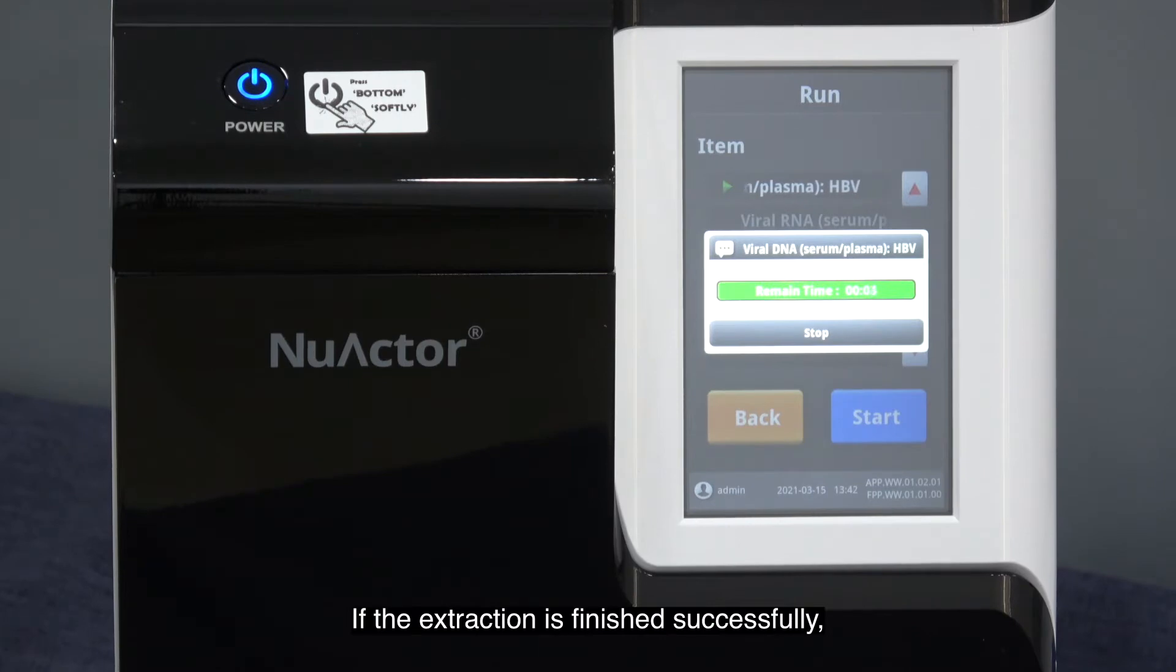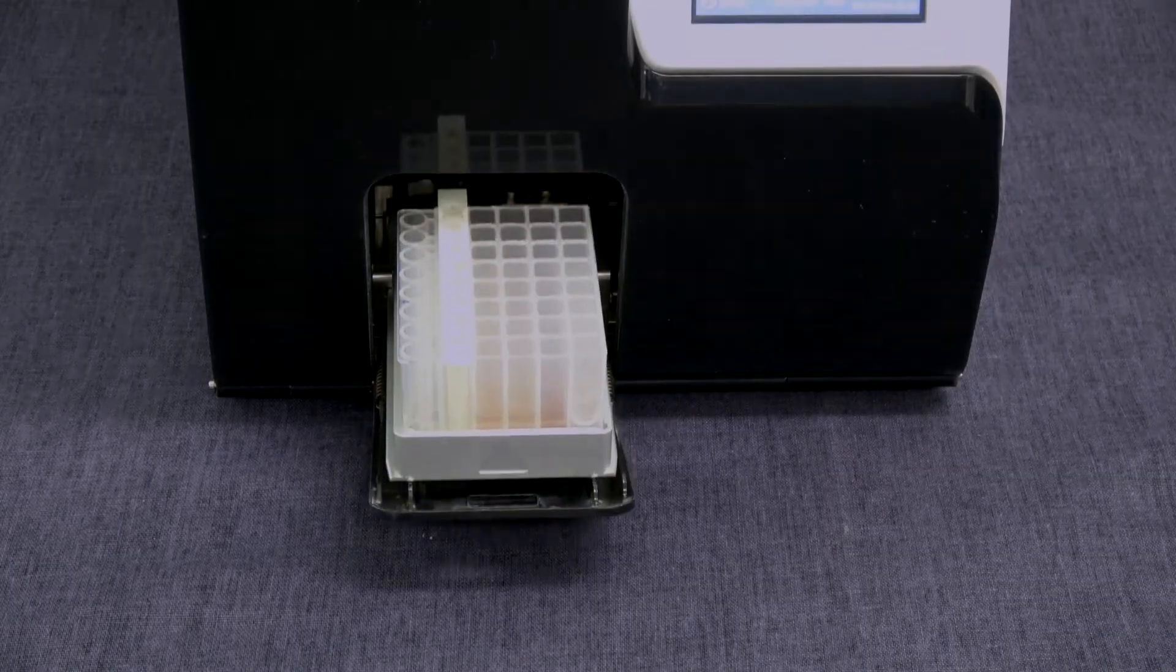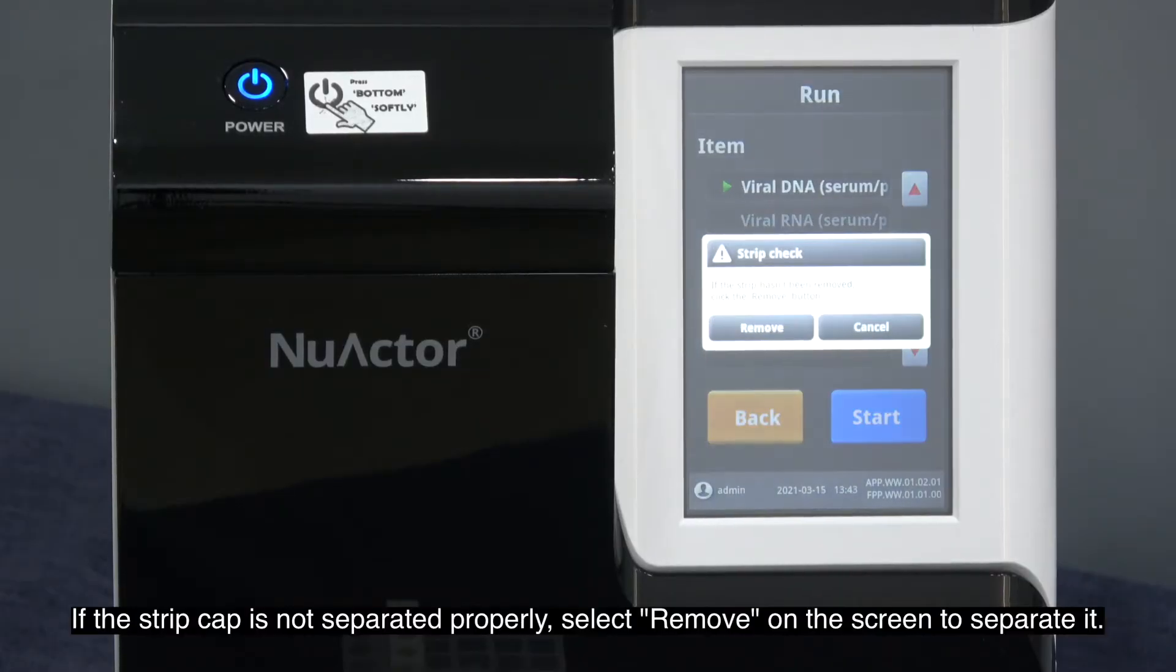If the extraction is finished successfully, remove the cartridge from the bay and proceed to the next step. If the strip cap is not separated properly, select remove on the screen to separate it.